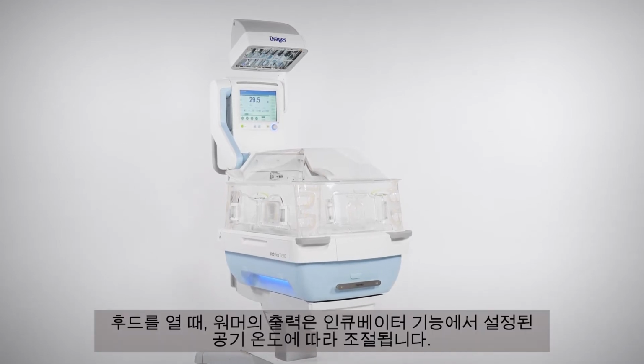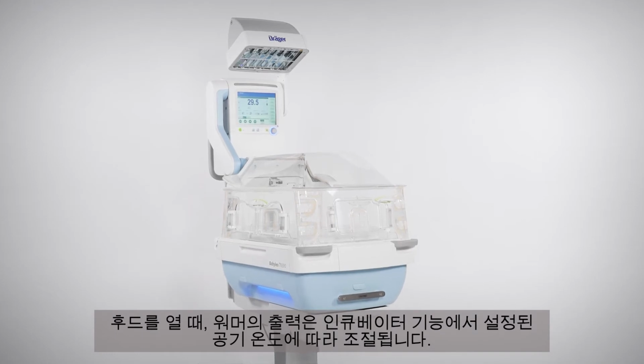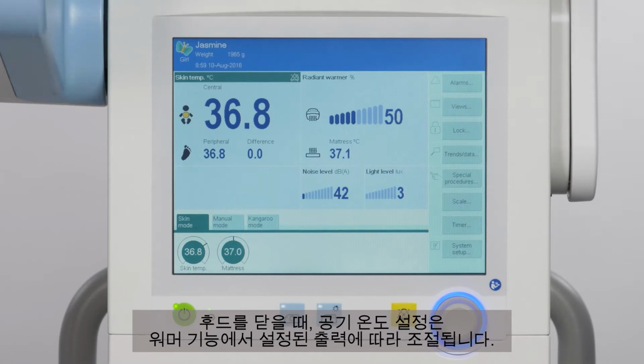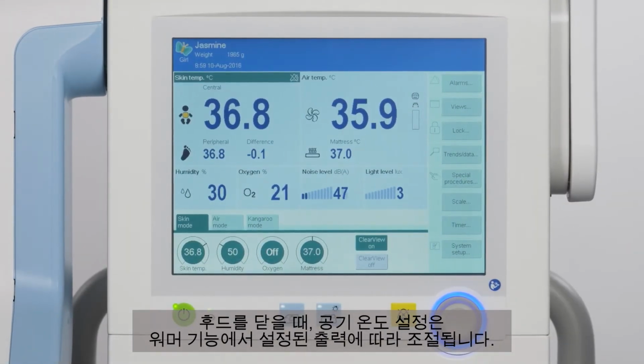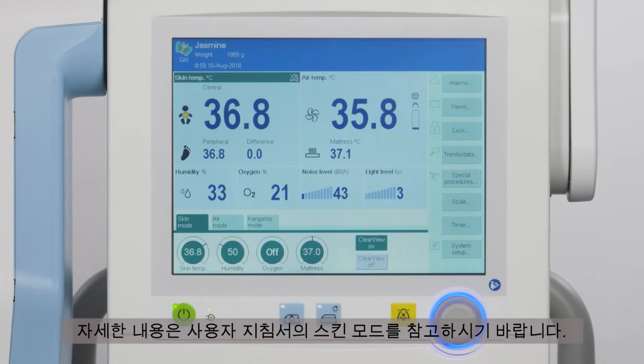When opening the hood, the radiant warmer power output adjusts according to the air temperature that was set in incubator operation. When closing the hood, the air temperature settings adjust according to the radiant warmer power that was set in radiant warmer operation. When therapy is running on skin mode, the set skin temperature will be used for both incubator operation and radiant warmer operation. Please refer to skin mode in the IFU for further details.